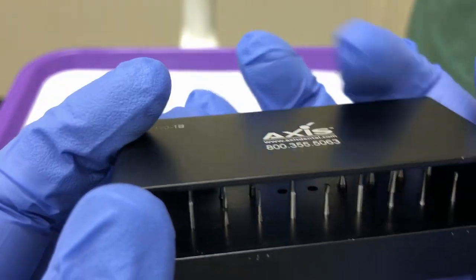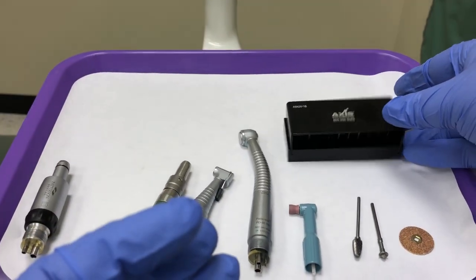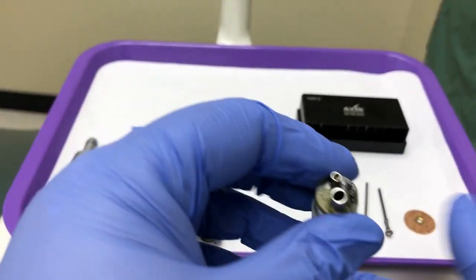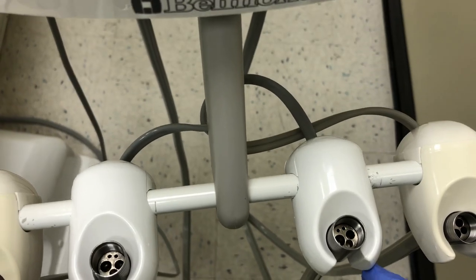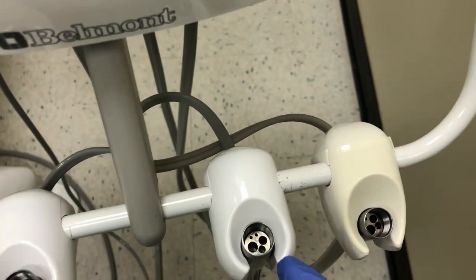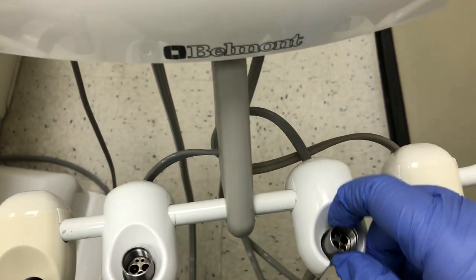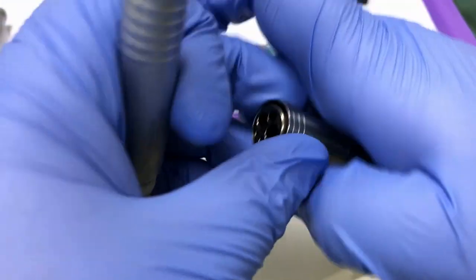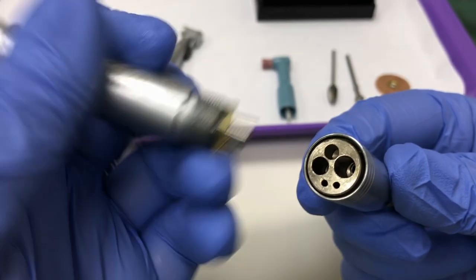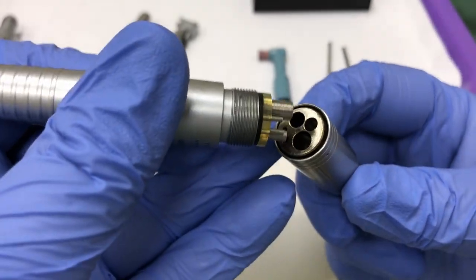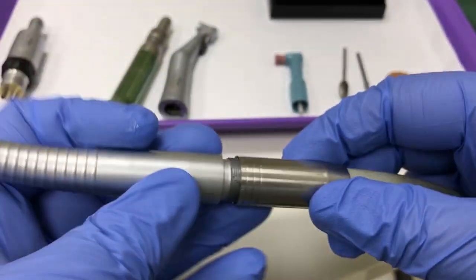To assemble your high-speed handpiece, it is one unit. Match up the tubes on the high-speed handpiece to the holes on the coupler. For your skill purpose, it does not matter which coupler you choose. There is only one correct way for the handpiece to attach. Line up the holes and securely attach it by turning the coupler.